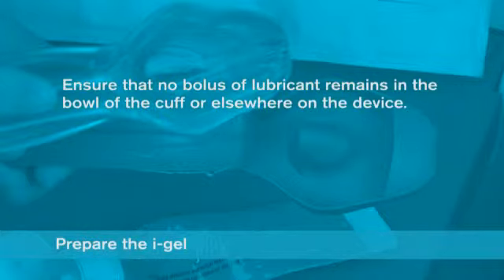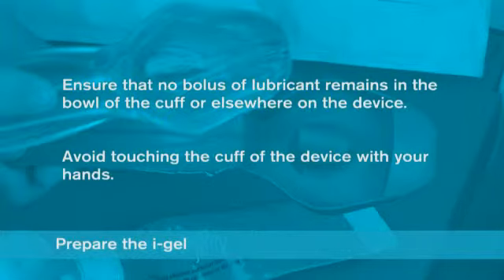After lubrication has been completed, check that no bolus of lubricant remains in the bowl of the cuff or elsewhere on the device. Avoid touching the cuff of the device with your hands.